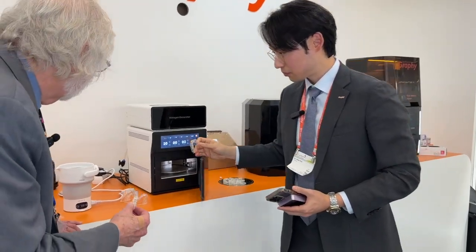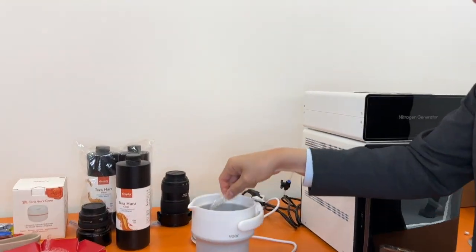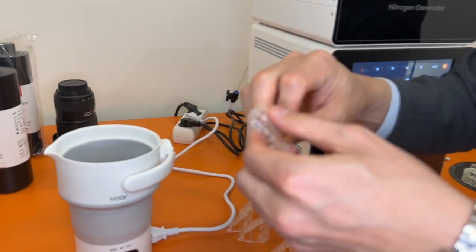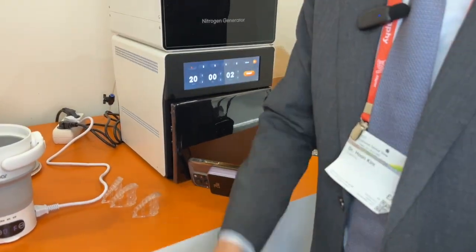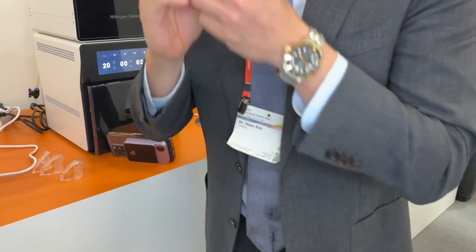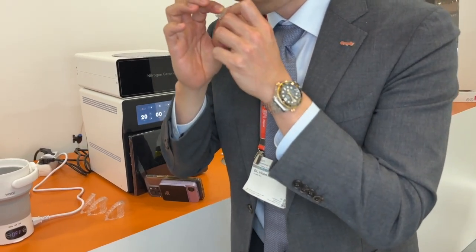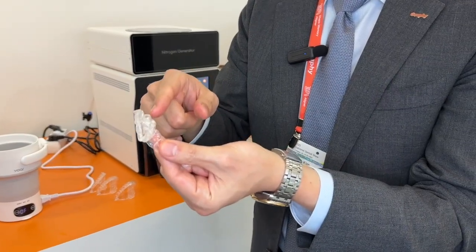Have a look — this is very hot water, boiling water. They're going to be easily deformed. Then cool down to room temperature — cooling. This is the fixity: they don't ever come back.